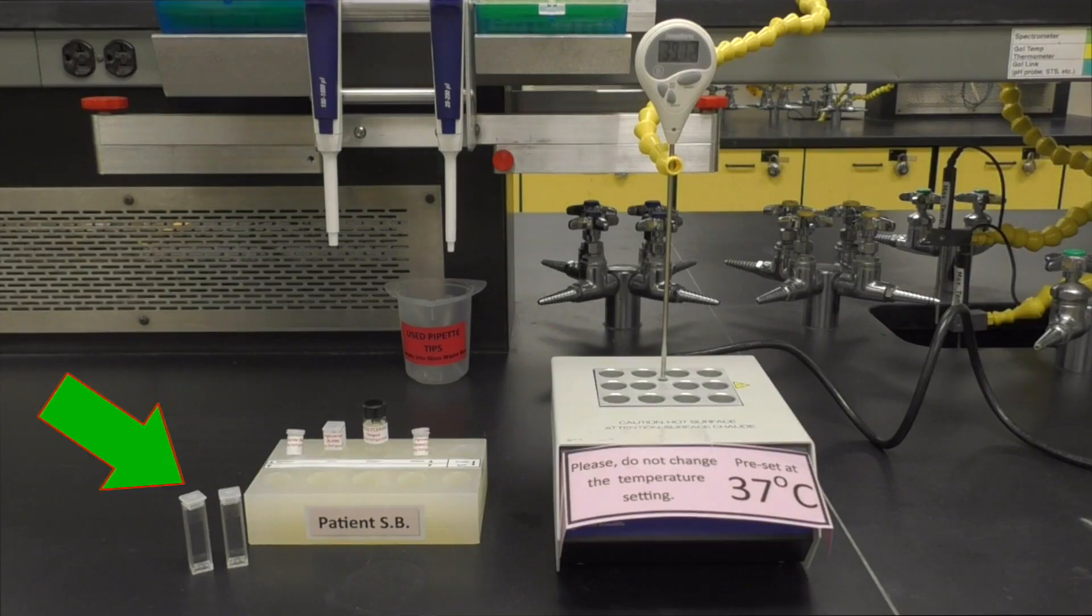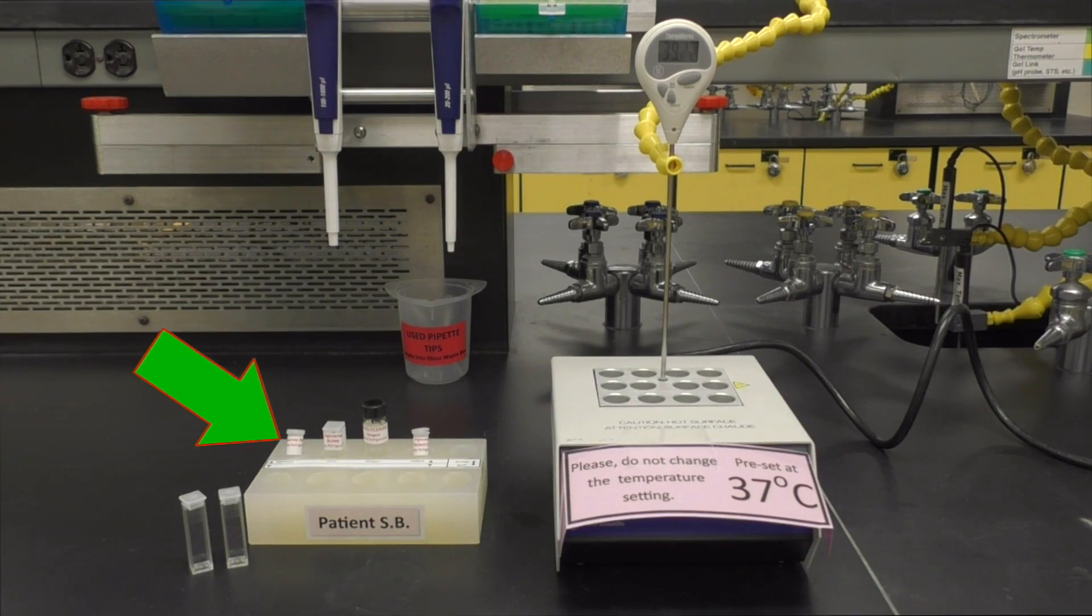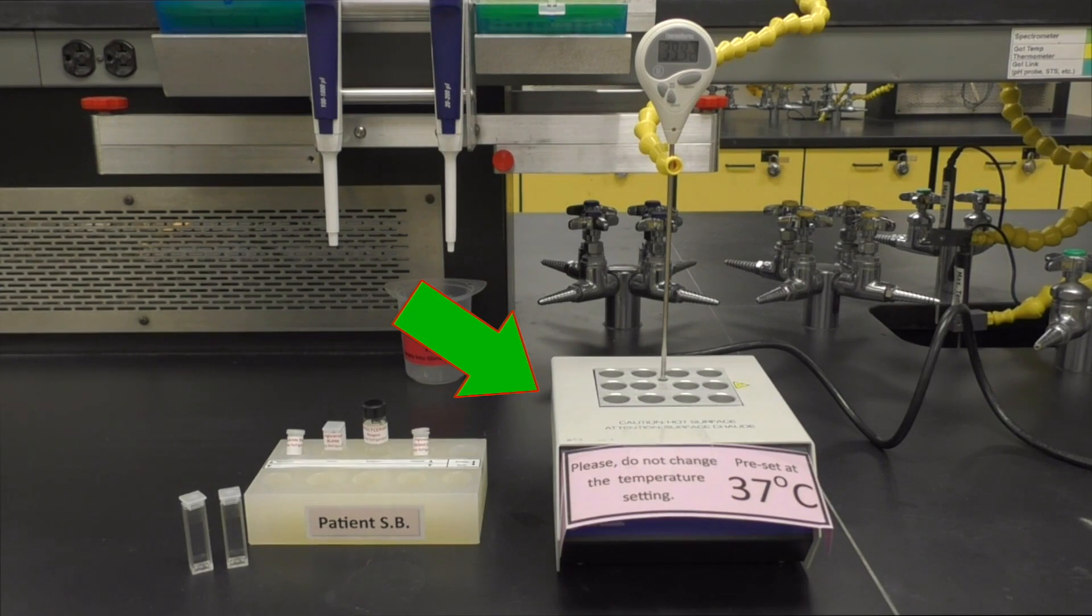To begin, you will need two brand new clean cuvettes and caps, your patient block, micropipettes and tips, and a dry bath incubator set to 37 degrees centigrade.